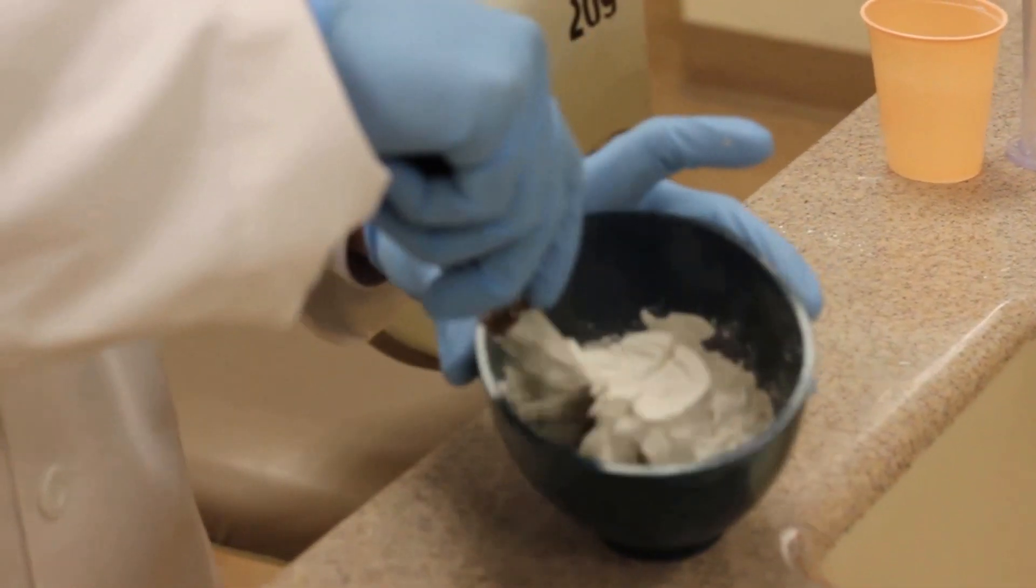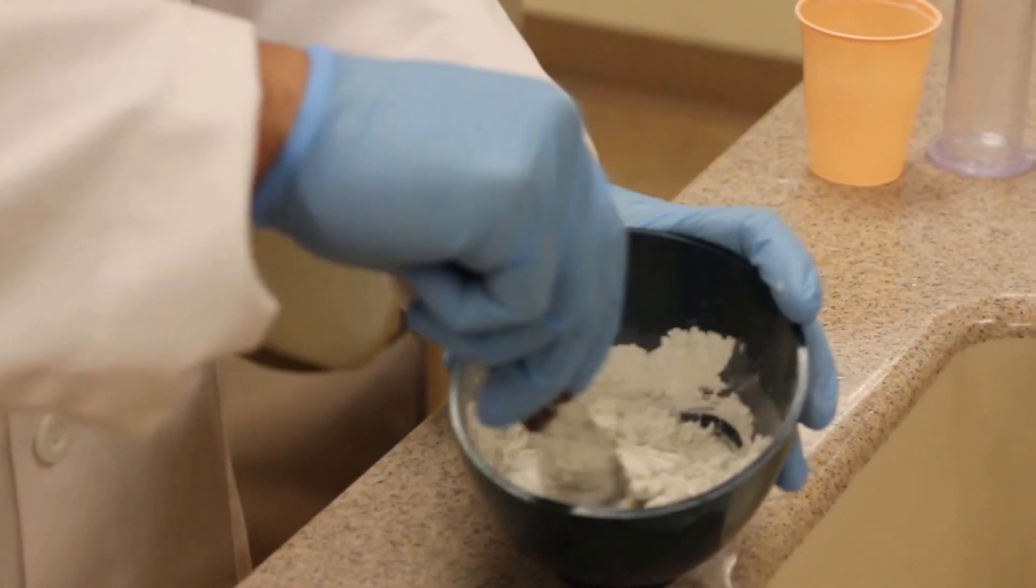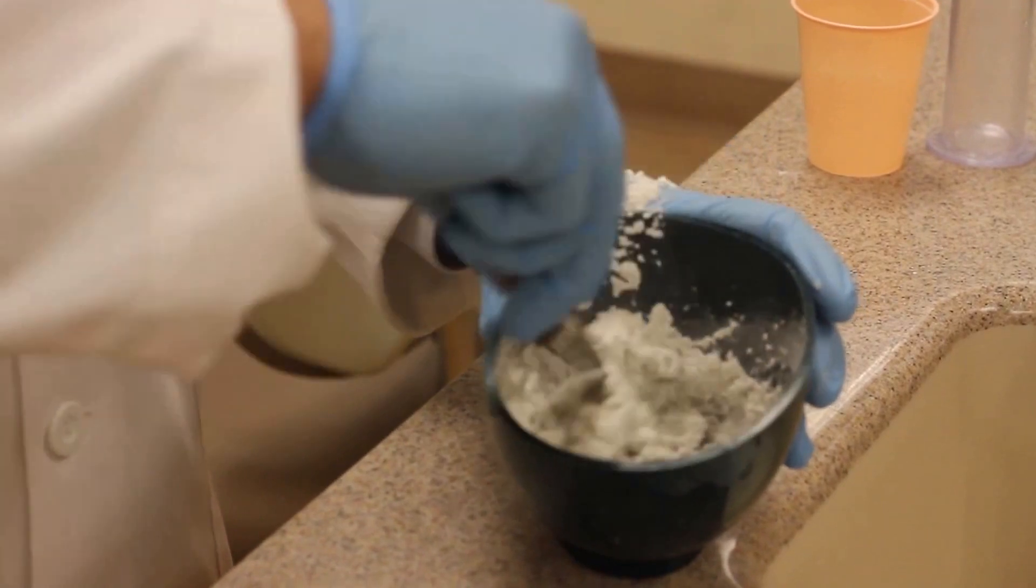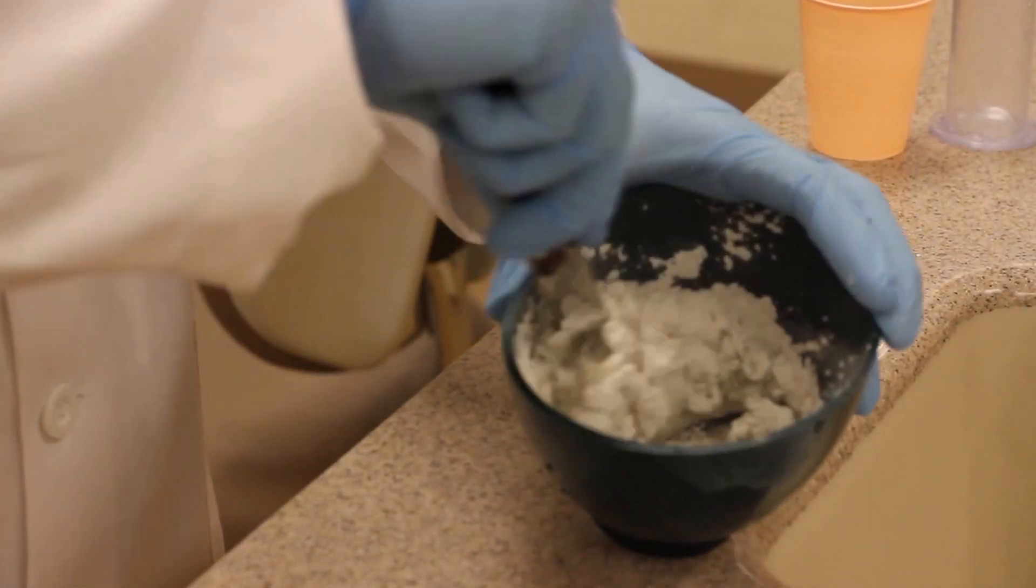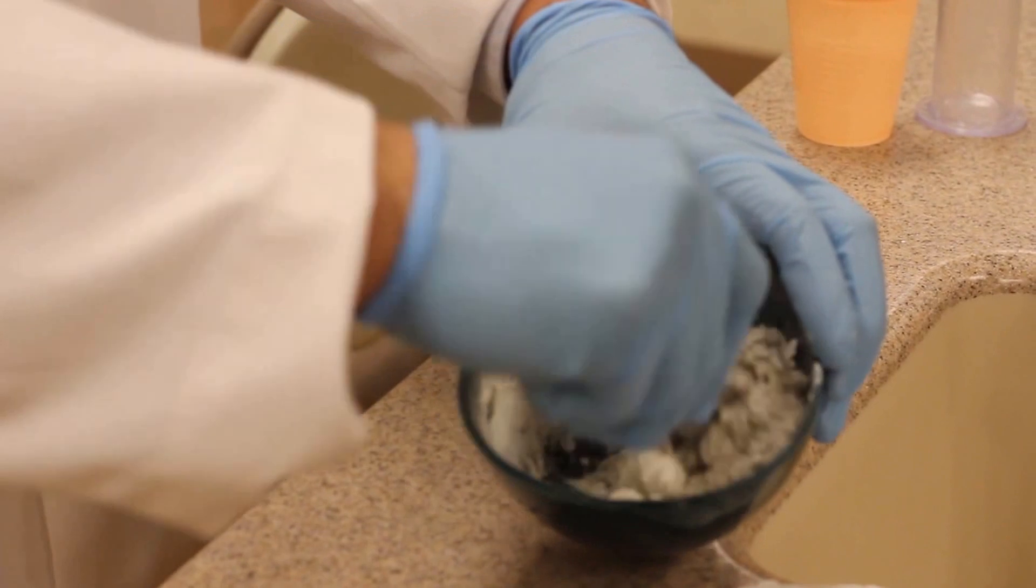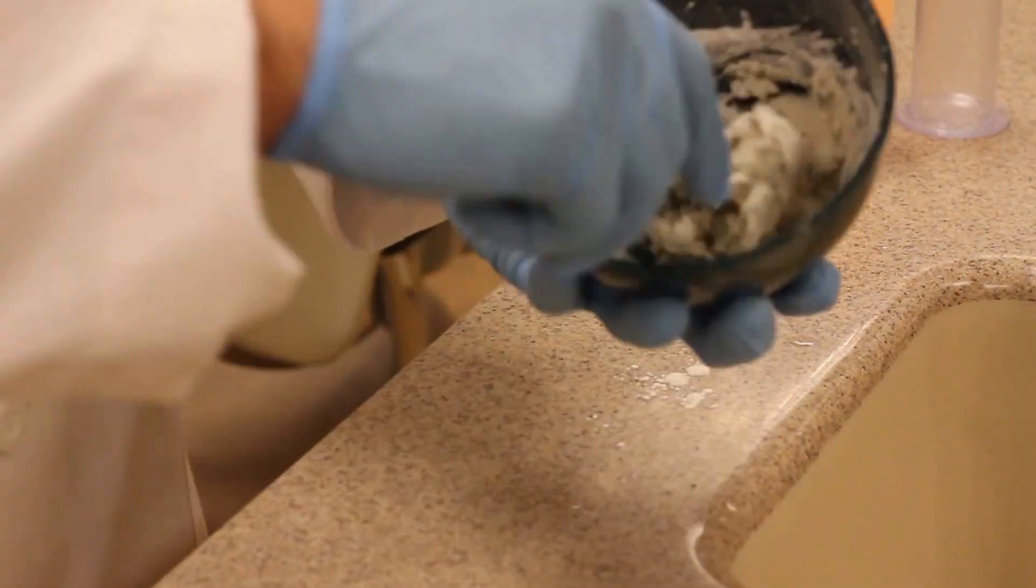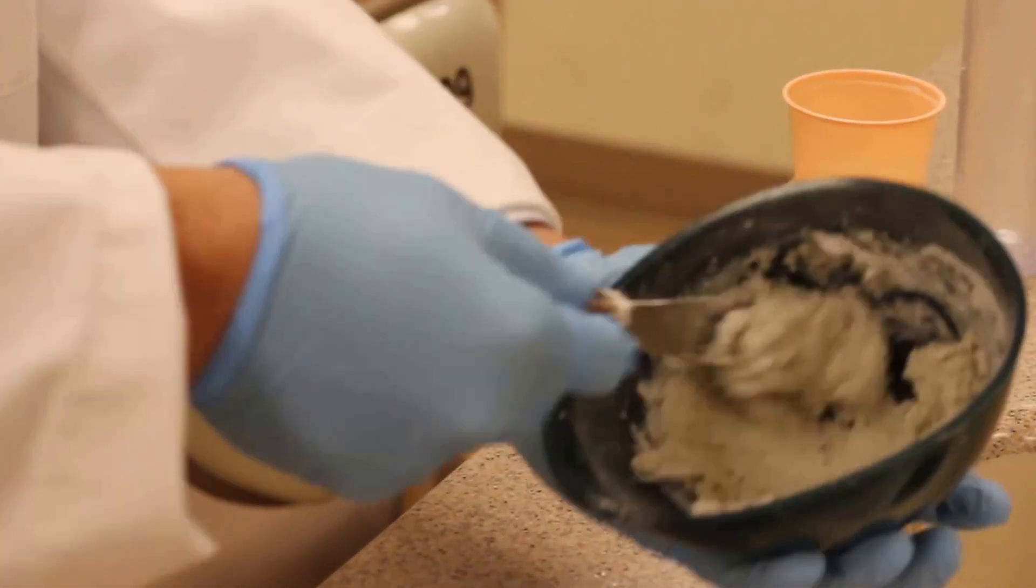And again I start slow in the beginning just so everything clumps together. If you go too fast things will kind of spill out like that. So I go real slow until everything clumps together. Okay, so now everything's kind of congealed together.